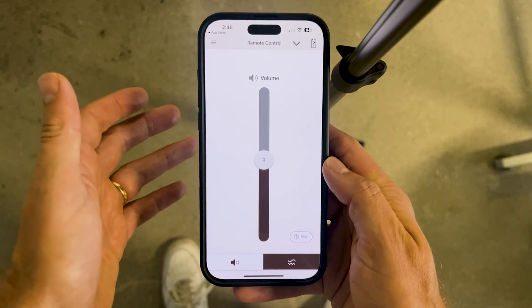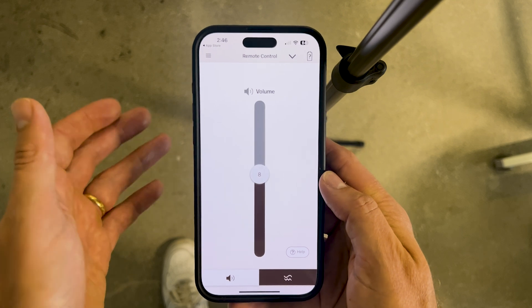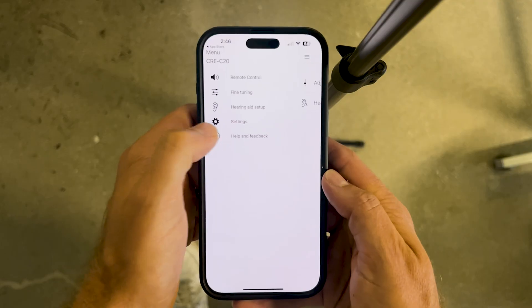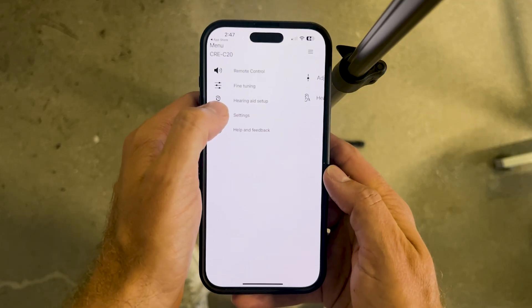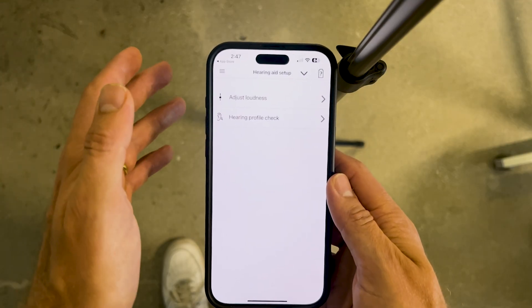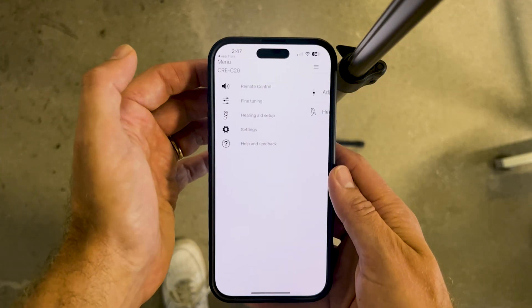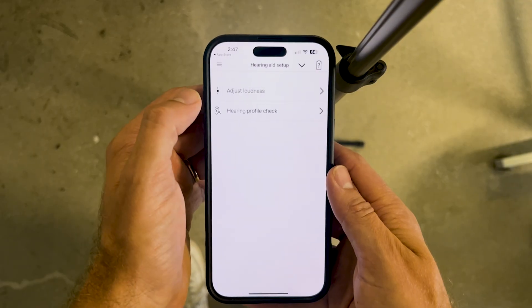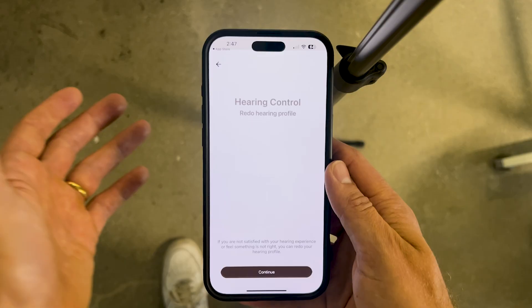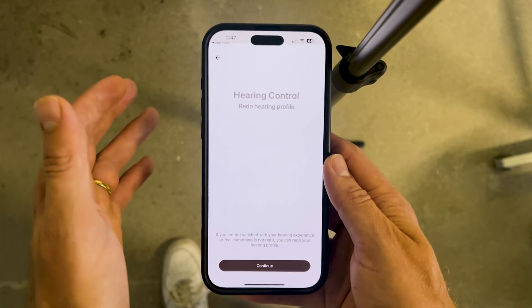The first thing you do is register for the Sony app. You'll need to create an account using an email address and your name. Once you do, you'll be sent into the hearing aid setup — this will be the first thing you're prompted to do. You'll select the product that you've purchased and then begin your hearing aid setup. It's worth noting that you can update your hearing profile anytime using the smartphone app by tapping the hamburger on the left-hand side, going into hearing aid setup, and tapping hearing profile check.